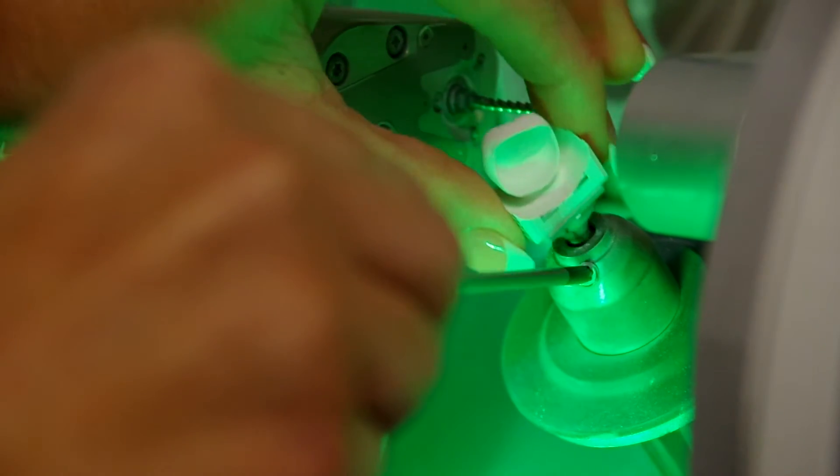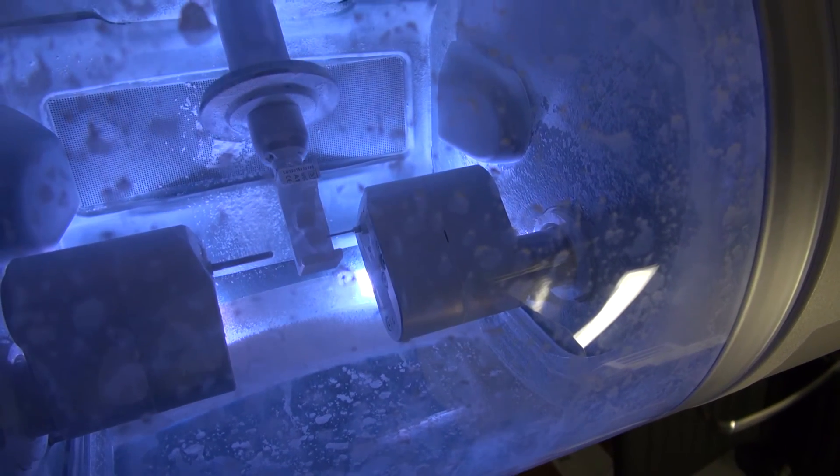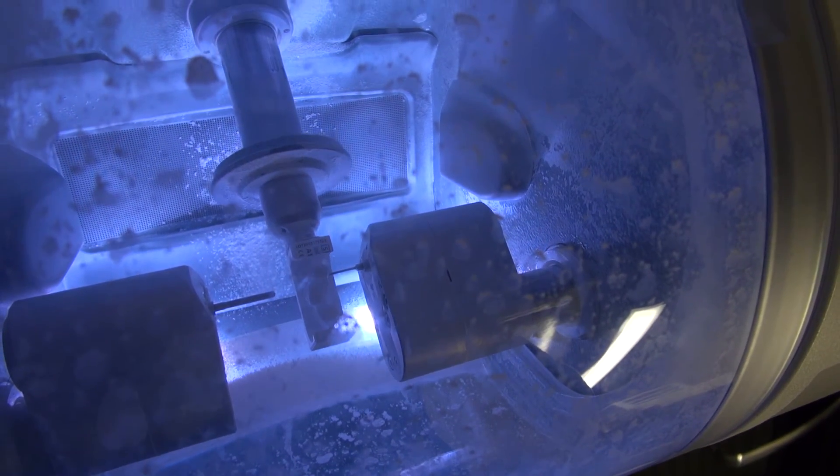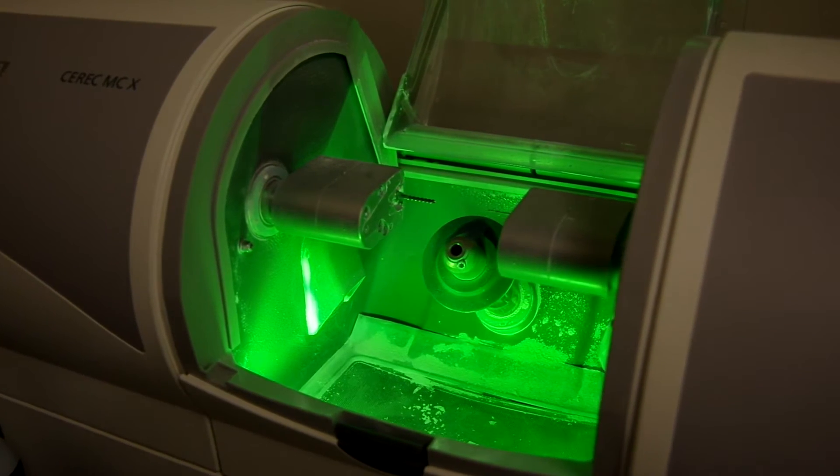The first time I saw this dry milling system and the powder was going up in the chamber and everything, the evacuation system works really well to pull most of it out. But there's some dust around there. It just looks different, and I thought, man, this is going to be really difficult to clean up. And so what we have found out is that there's just not a lot.